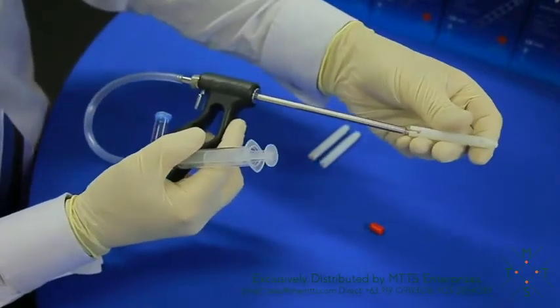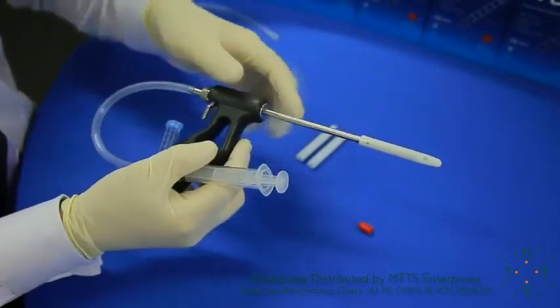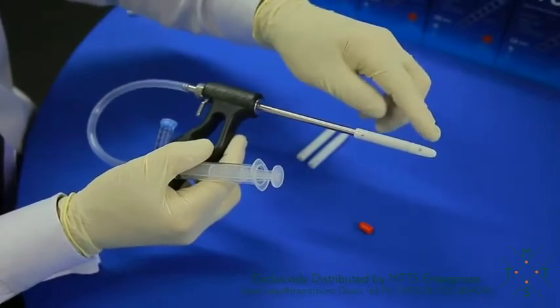You then simply place the capsule onto the end of the handpiece and just check whichever technique you're going to use, or if you're left or right-handed, that you've got the capsule hole facing in the direction that you're aware of.